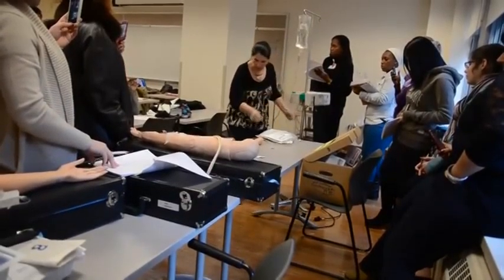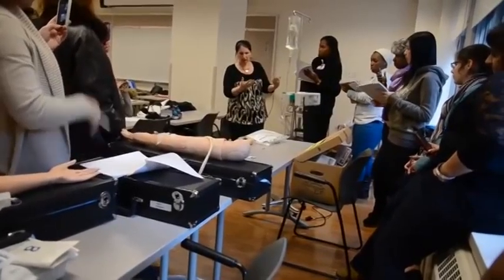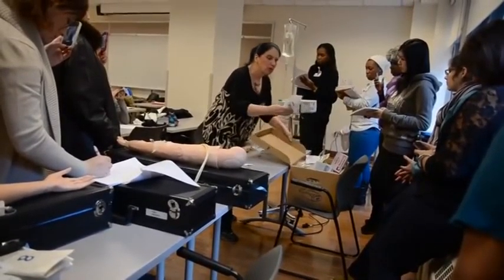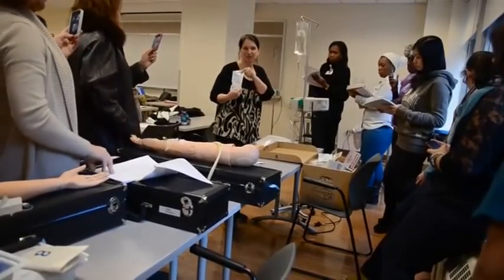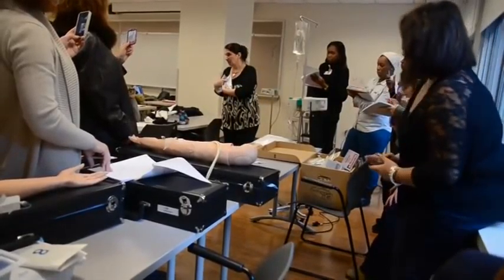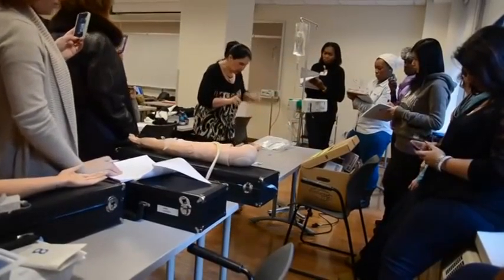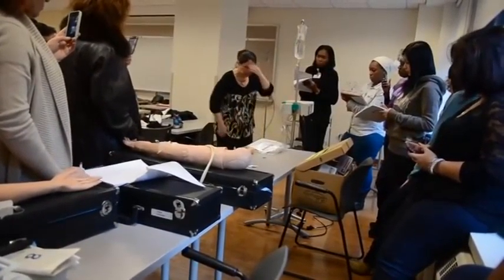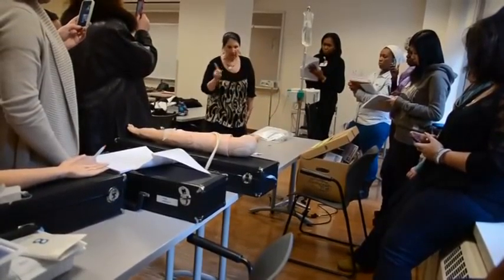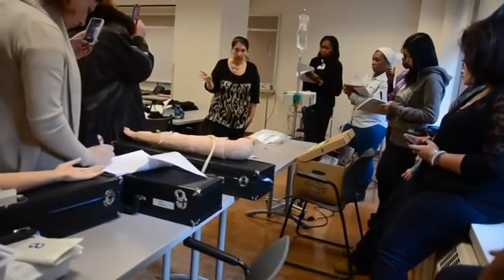So now this one is really hooked into this pump. Tubing for a pump is special tubing — the drip factor is 60. So now you have to remember: for number three, I walk in and find this patient hooked up to a pump. I have to give an antibiotic through the pump. Number four is bypassing the pump. When you give an IV through the pump, the IV that's there is not going for that period of time — this is stopping. If you have a patient who has to have what's in here all the time, 24-7, you have to do skill number four.